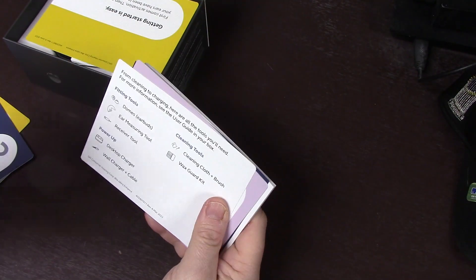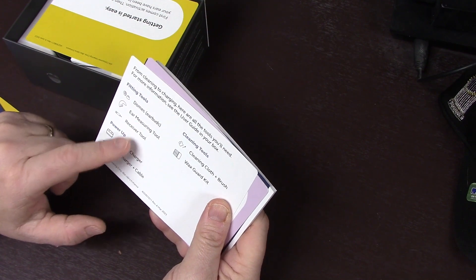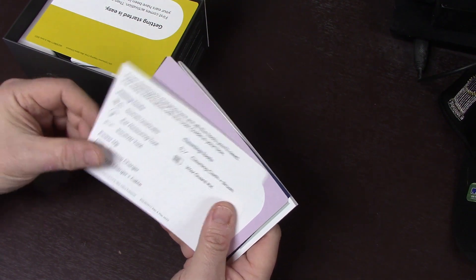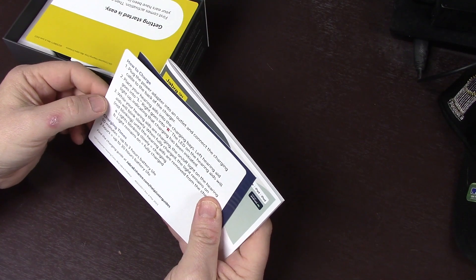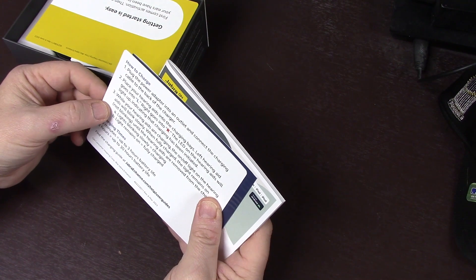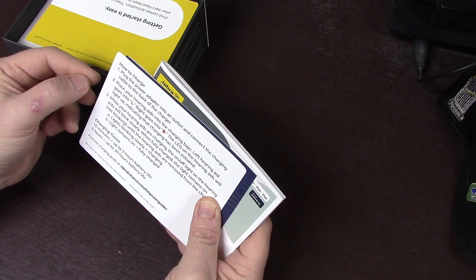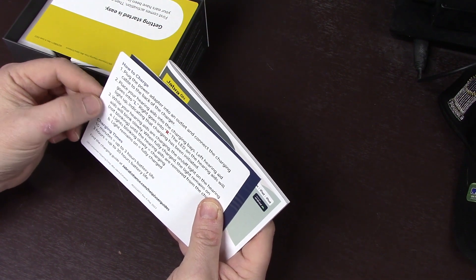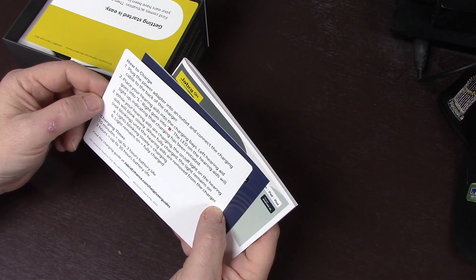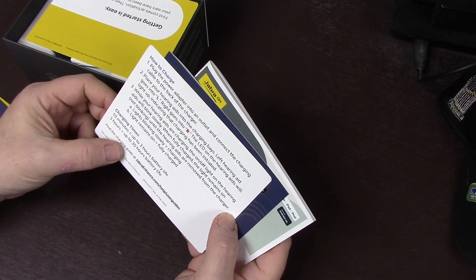What's in the box: the little domes or earbuds, an ear measuring tool so you can set it up properly, a receiver tool, cleaning cloth and brush, wax guard kit, wall charger and cable, and charging tips. Plug the power adapter into an outlet, connect the cable to the charger, and place your hearing aids in the charging base - left goes into L, right into R. The LED will light up indicating charging. While charging, the light blinks slowly; when fully charged, the light remains solid. Ten minutes gives you 3 hours of battery life; 3 hours of charging gives you 30 hours of battery life.